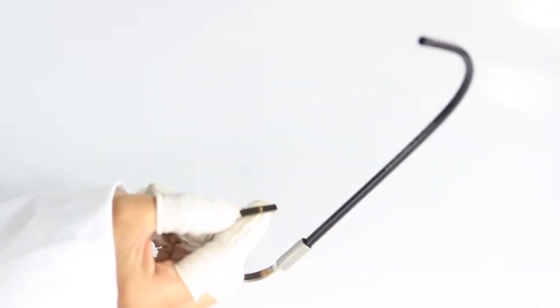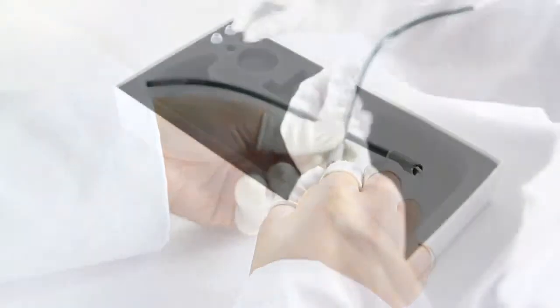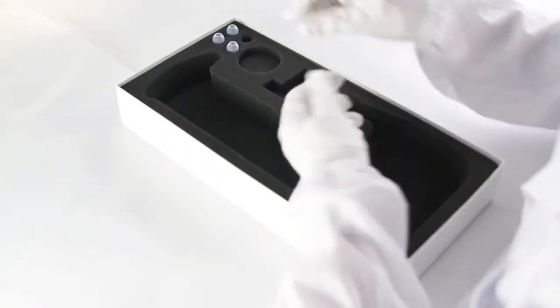The Acoustica features a premium ergonomax headset which is pre-angled for a precise fit, and our comfort seal ear tips are expertly designed for both comfort and improved hygiene. The super duty lightweight chest piece provides excellent sound quality and it's easy to use.